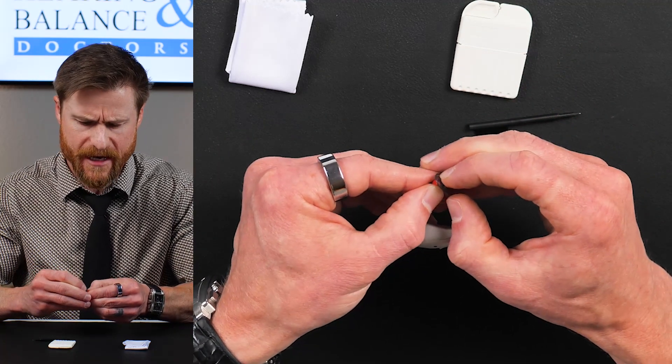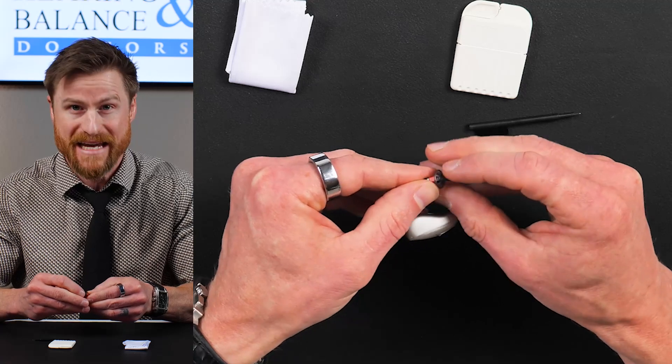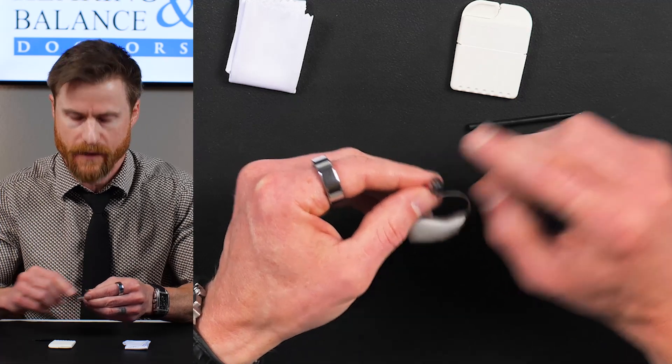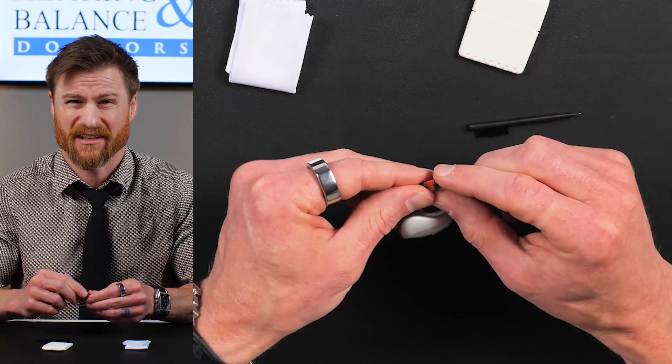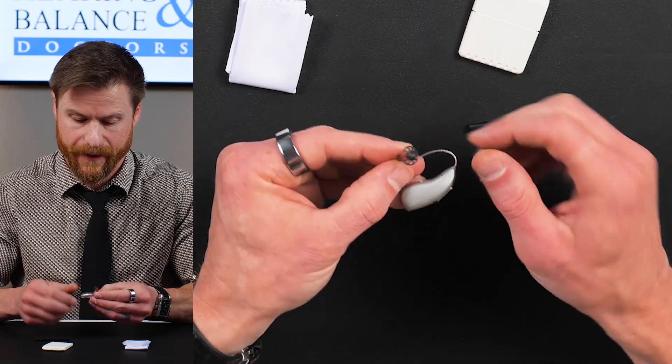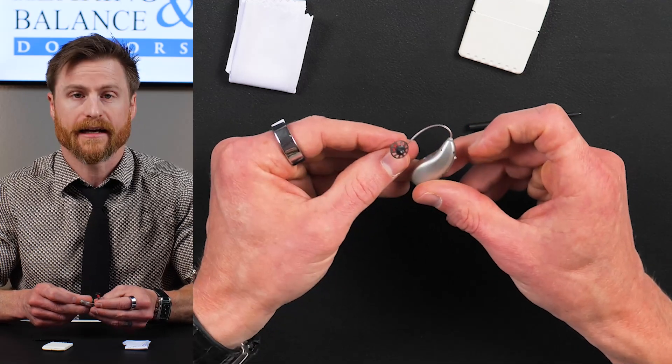Replace it if you need to with one of these replacement filters as needed. So yeah, on average, I'd say probably if I had to choose like a mean average, I'd say once a month people have to change these. Maybe once every two months. So that's how you clean a hearing aid.